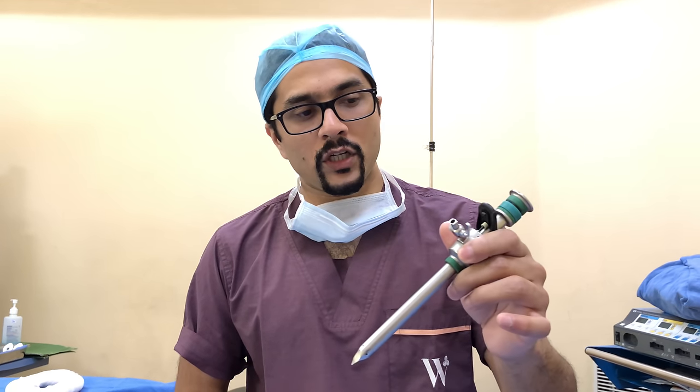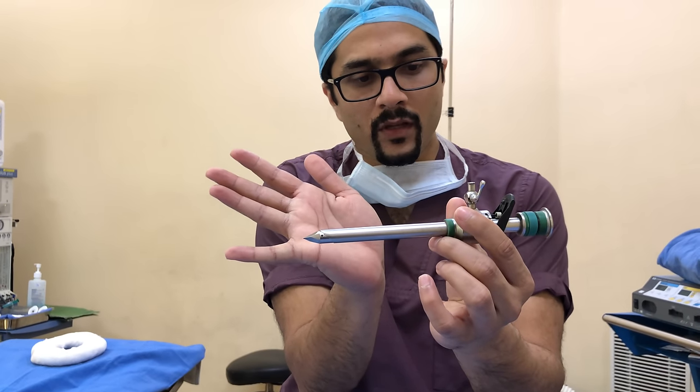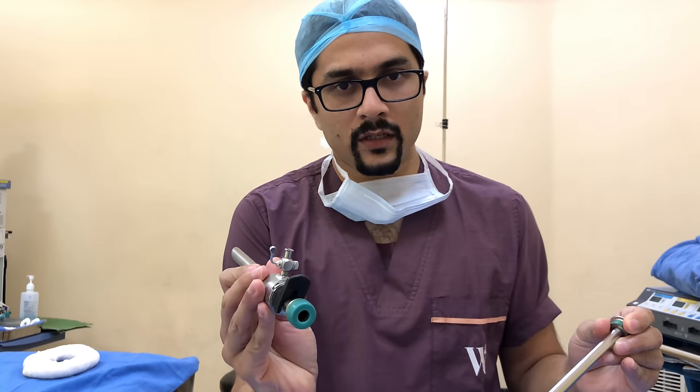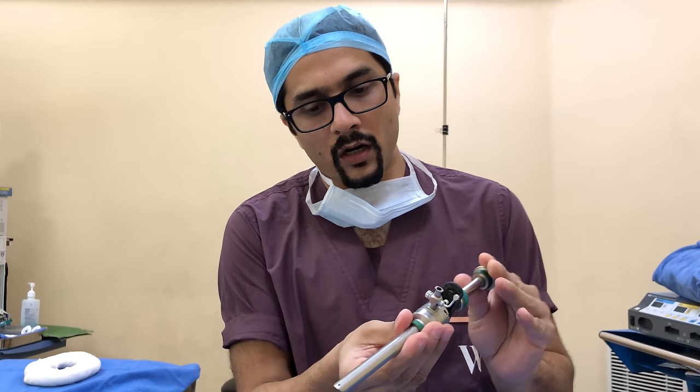If you can't do the Veress needle method, then we do the open method — the Hassan's method. Once you achieve pneumoperitoneum, the next step is to put in a trocar. This is a laparoscopic trocar — you can see it is a metallic trocar with a sheath through which instruments will go in.